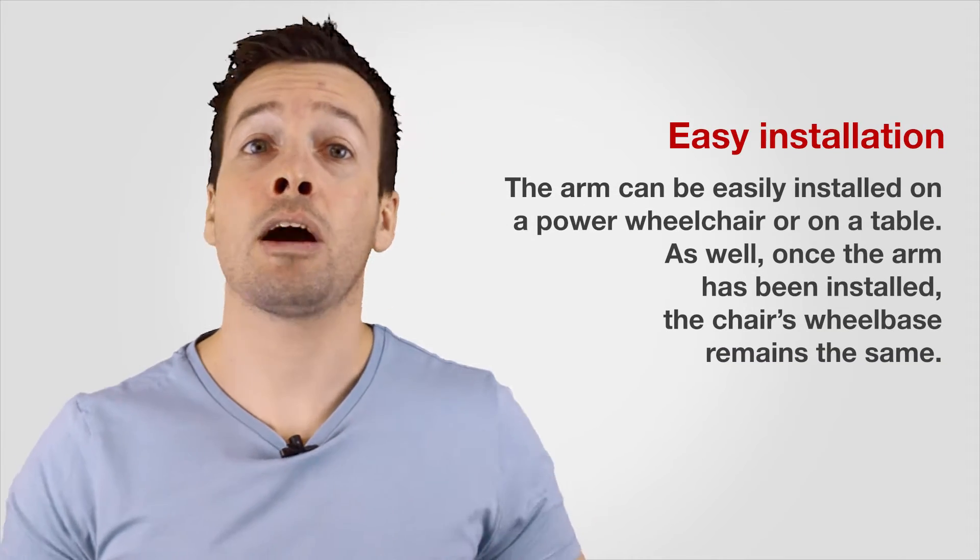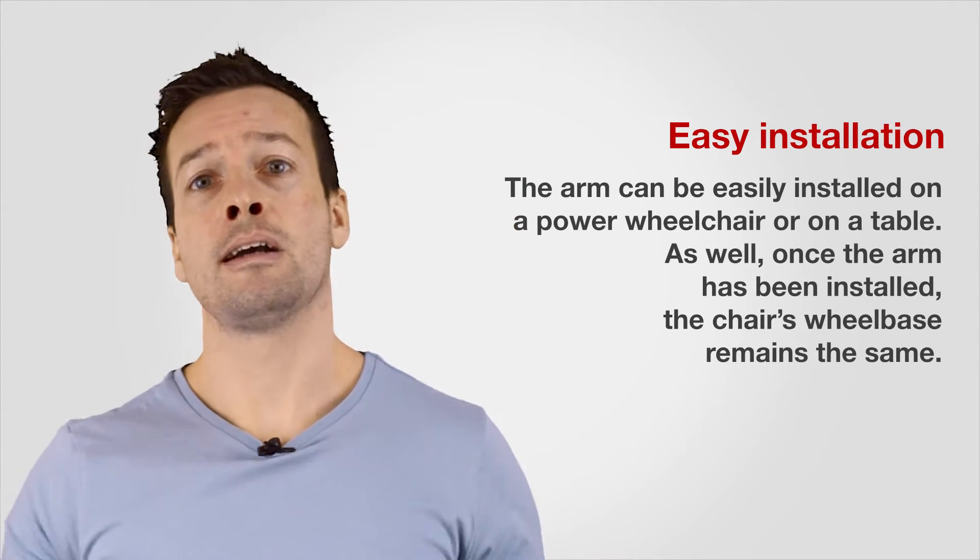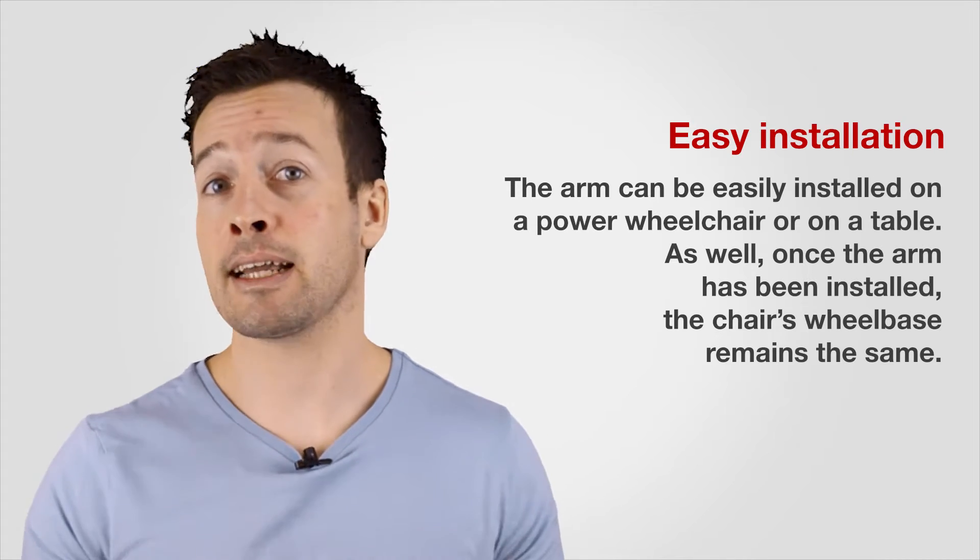Easy installation. The arm can be easily installed onto a power wheelchair or a table. Once the arm has been installed, the chair's wheelbase remains the same.